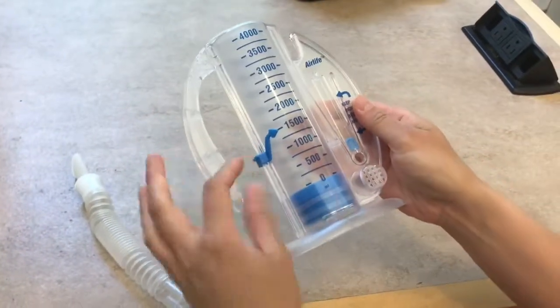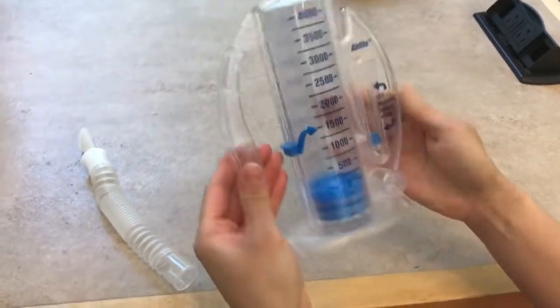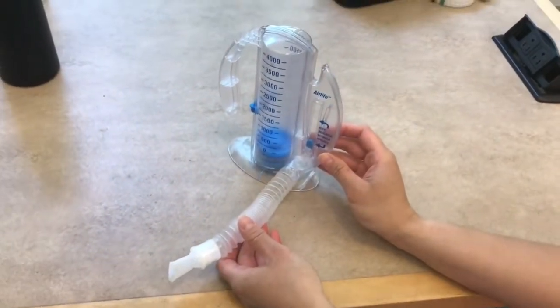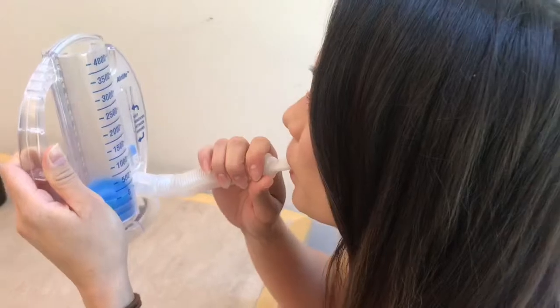How to use an incentive spirometer. You're going to grab it. This is the indicator on how high you want the patient to go. Connect your little nozzle there, and then you should be set. Educate your patient and find out how many times they have to use it.